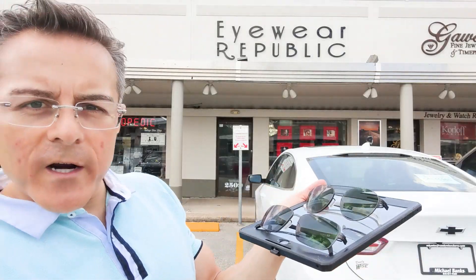Now we are at 45 seconds and we're going to go ahead and call it. It didn't get sunglass dark, as you would probably be thinking about if you hadn't seen any of my previous videos. This right here is about as dark as it's going to get when it's a very, very hot day. Transition lenses do not get sunglass dark in very hot temperatures because there's an inverse relationship between how dark they get and the temperature outside.